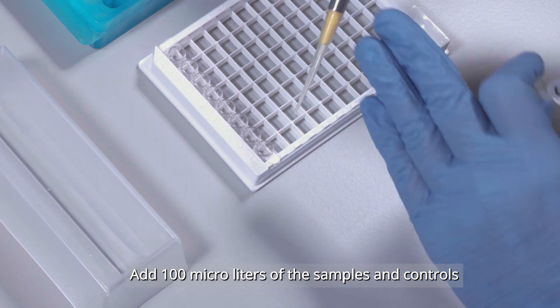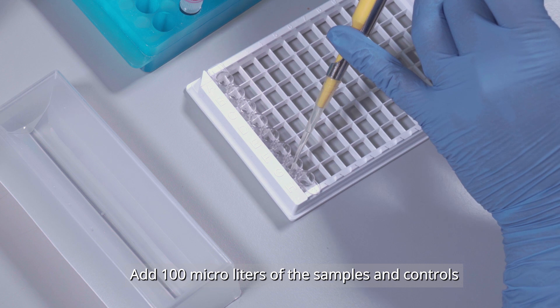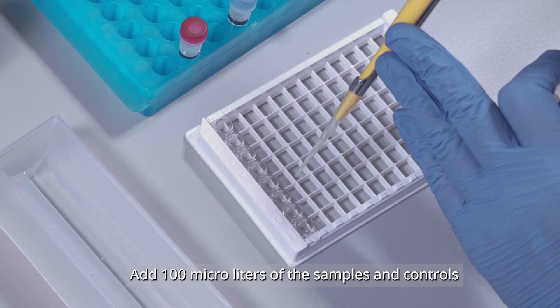Add 100 microliters of the previous dilution to the wells where you are going to identify if your samples have antibodies against the African swine fever virus.